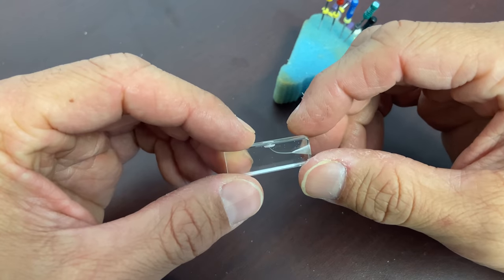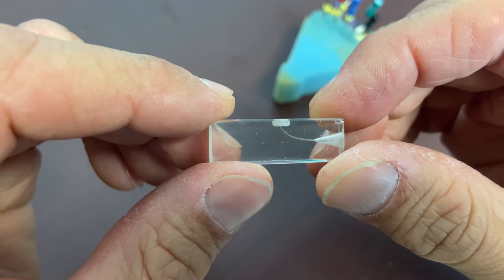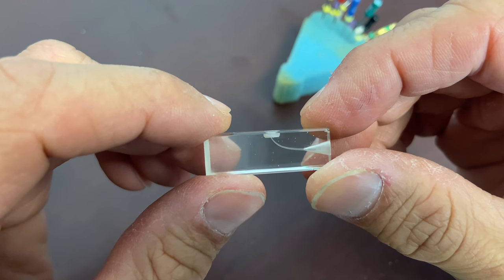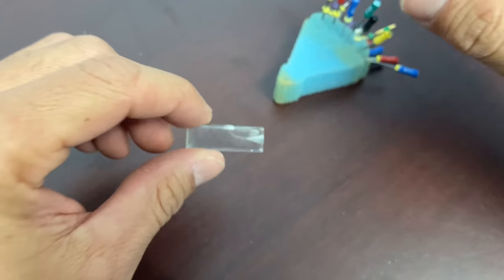Hey guys, Ash here. Let's talk about filing — there are going to be three different types of filing we're going to go over. We're going to use this plastic block, which is pretty basic.